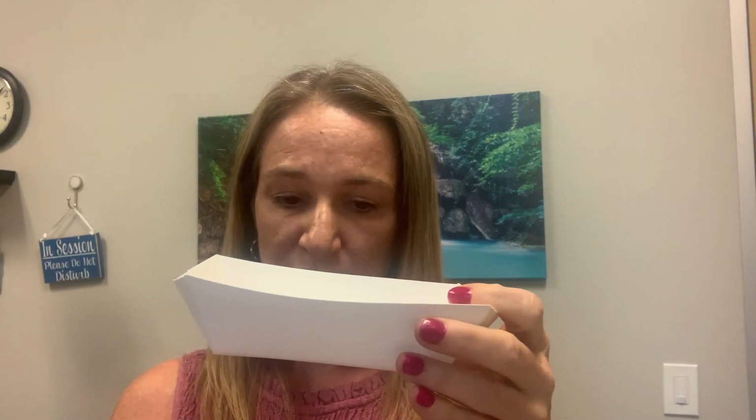You'll take this container and set it down, and then take out this tube, and before you open this, make sure you fill out, you just put your name and your date of birth on here, and then the date. There is an option to check if it's formed or what kind of stool you have.